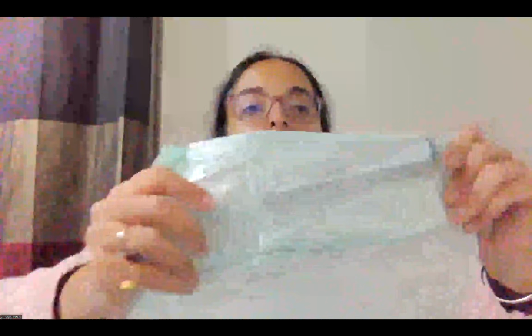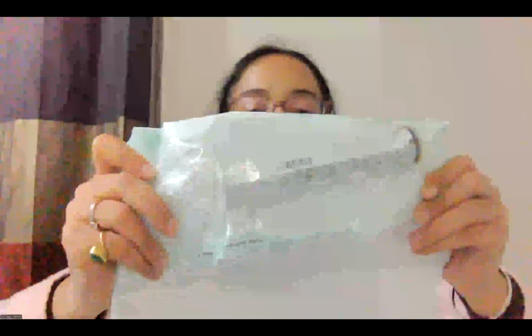The most commonly used syringe is a 10 cc Luer-Lock syringe, and plastic syringes are used. However, glass syringes can be used when we are using liquid embolic agents like glue and DMSO. Then there is something known as a vacuum or vacuum lock syringe. It is a 50 cc syringe and it comes with a lock. This can be shown in the Viva, and the use is in mechanical thrombectomy for clot aspiration.